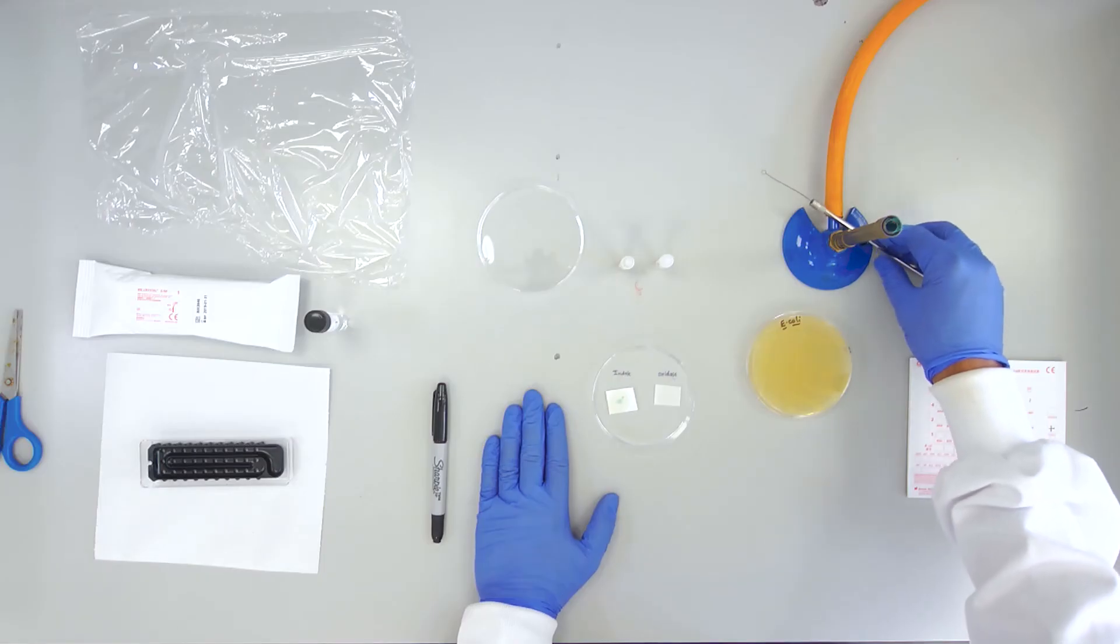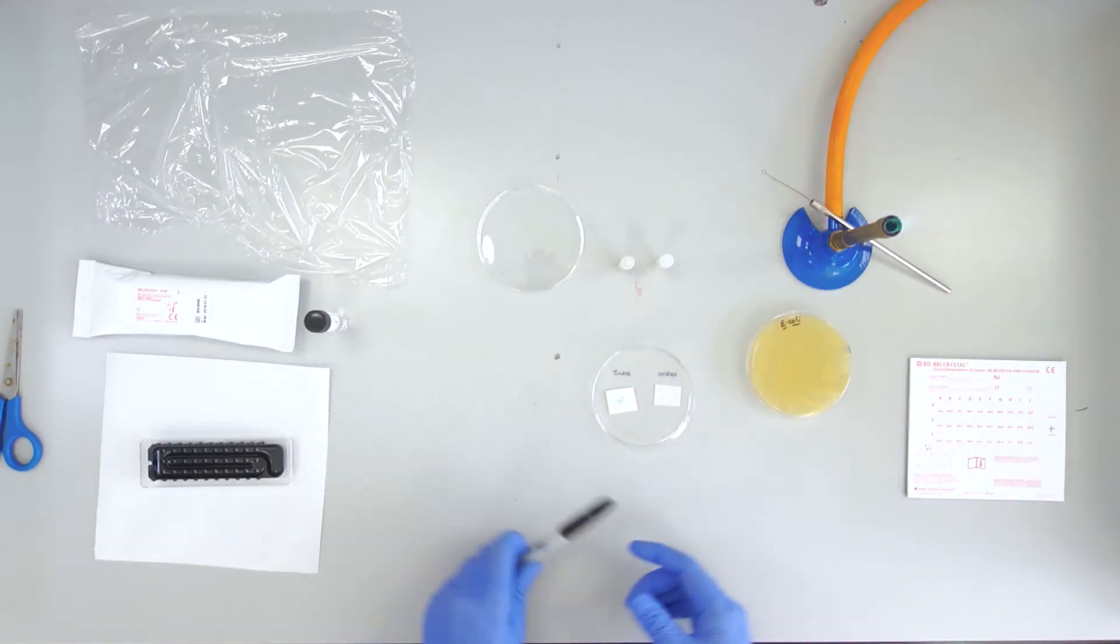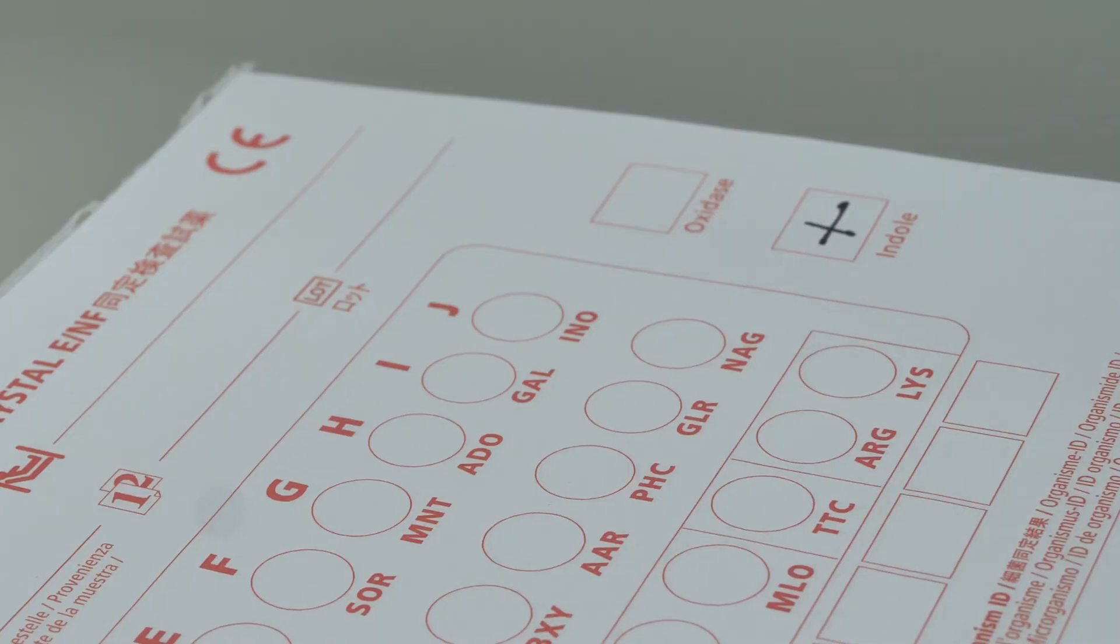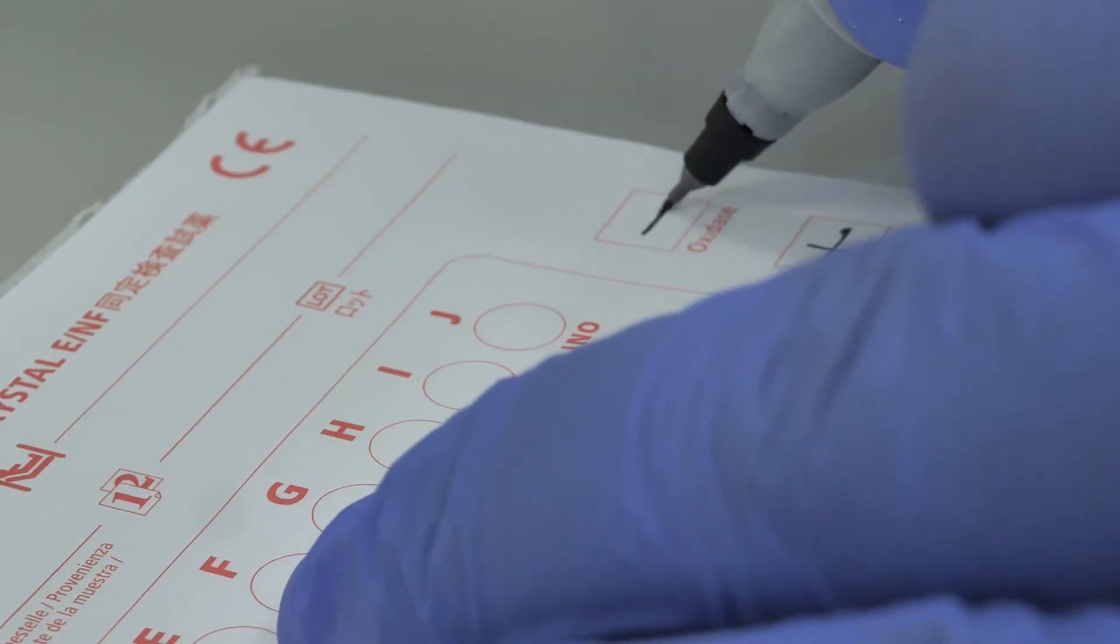Again record this result on the BBL crystal results sheet.